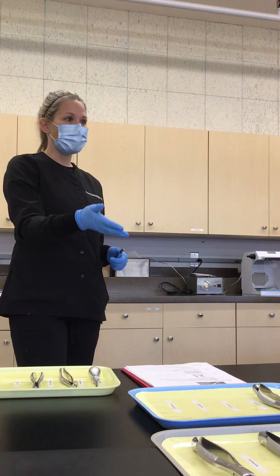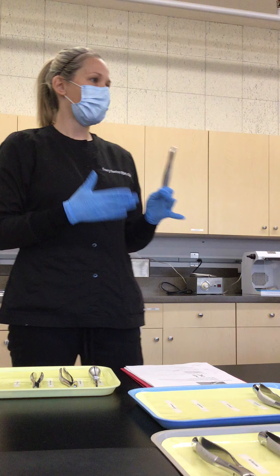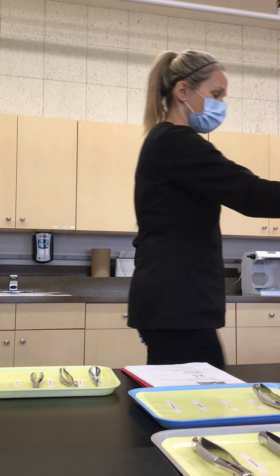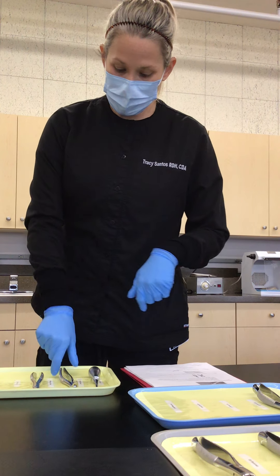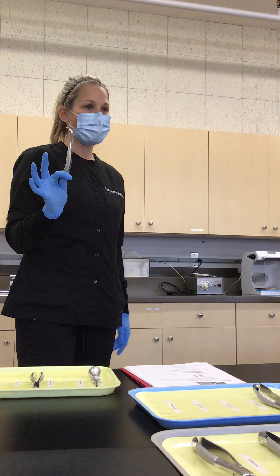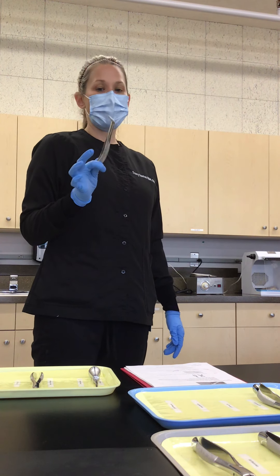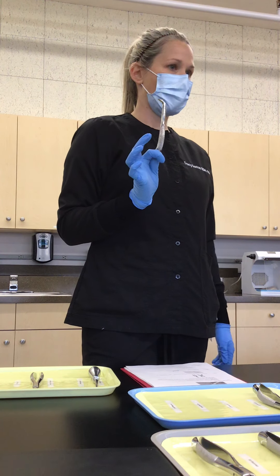Their teeth might not even be big enough to access with adult forceps, and we just don't need as much force to take out a baby tooth. So 101 is total universal. Just like we learned, the 150 is your maxillary universal. The 150S is your maxillary deciduous universal — make sure you write 150S if it's the pediatric version.